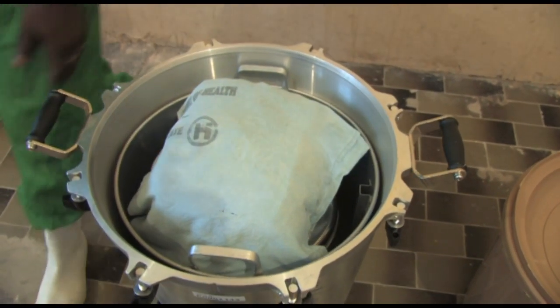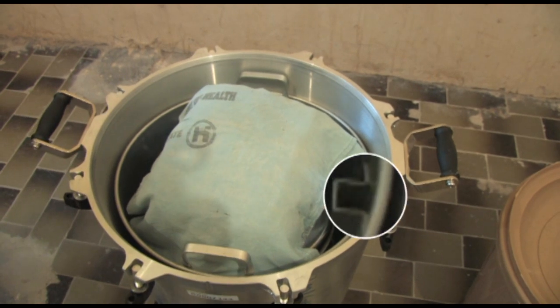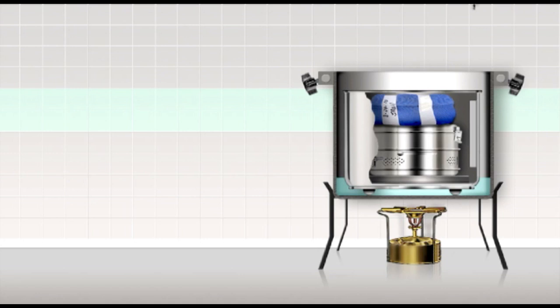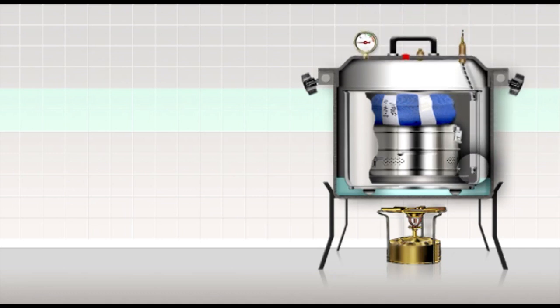As you face the unit, make sure that the air exhaust channel located inside the container is on the right-hand side of the container when it is placed in the unit. The reason is that when the cover is placed on the unit, the tube position matches with the channel and you can easily guide the air exhaust tube into the channel.